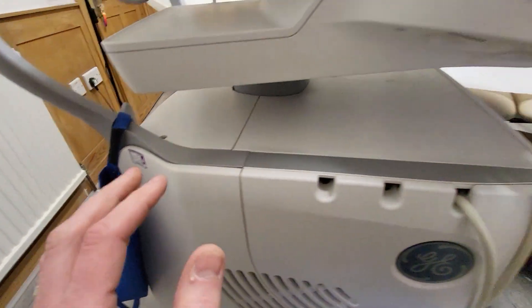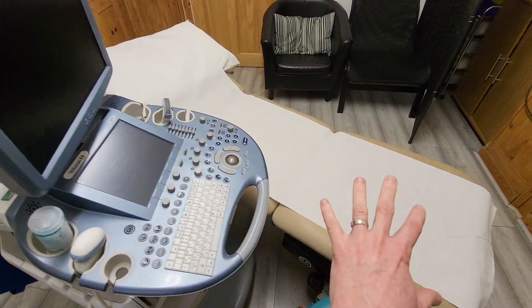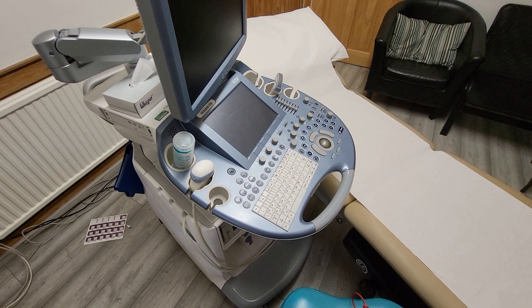You'll see it when you're in dentists and places like that. Sometimes medical beds, medical hoists, things like that.